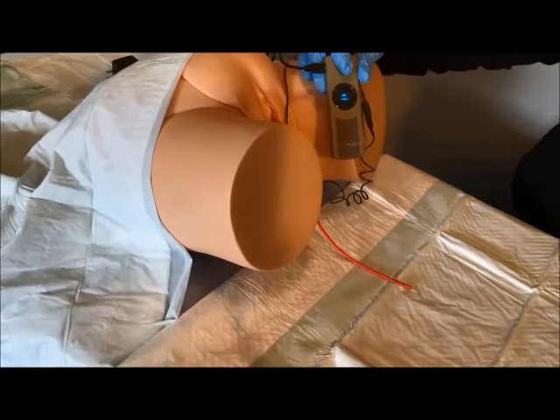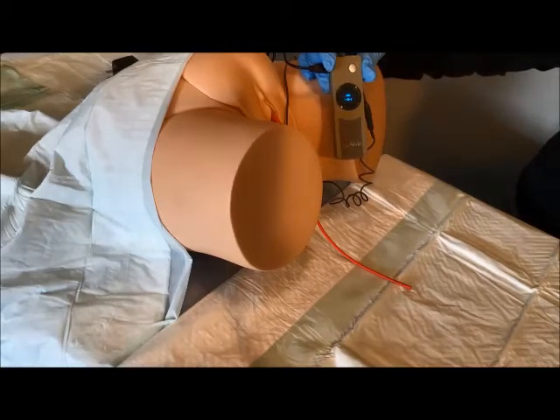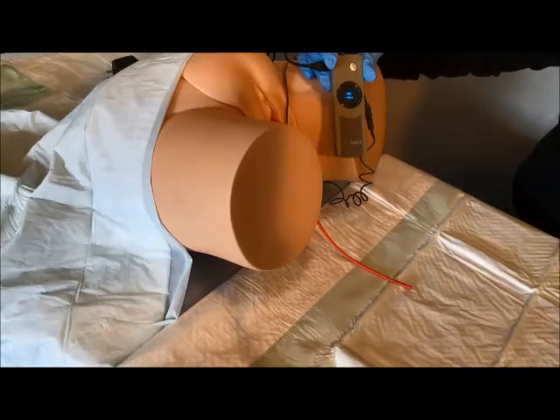The Uroshield driver works intermittently in cycles of 15 minutes active followed by five minutes idle. You can hear a low hum sound from the actuator during the active period. The Uroshield should be active continuously — 24 hours a day, seven days a week — except when the patient is bathing or showering, so please keep it connected to the main electrical supply.